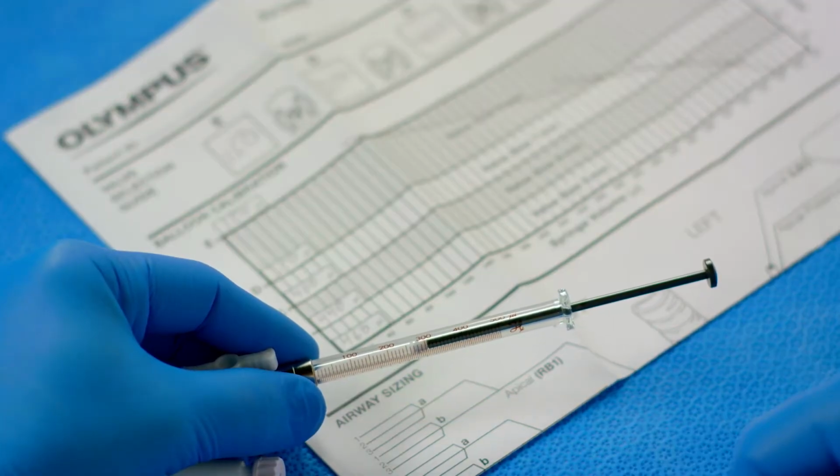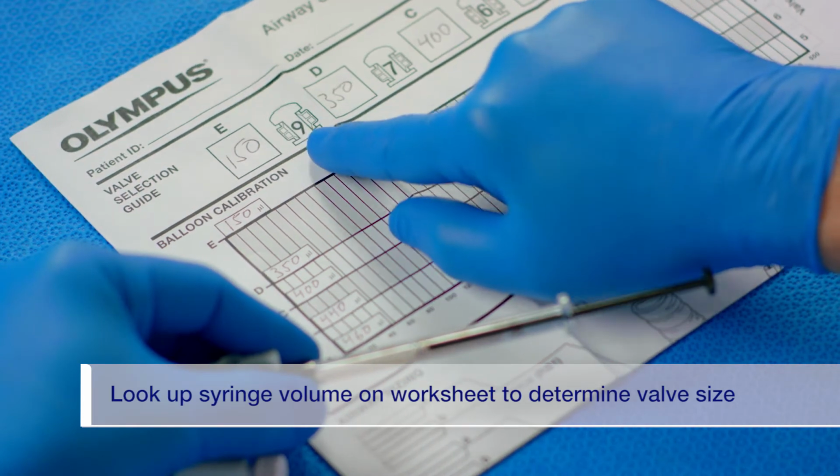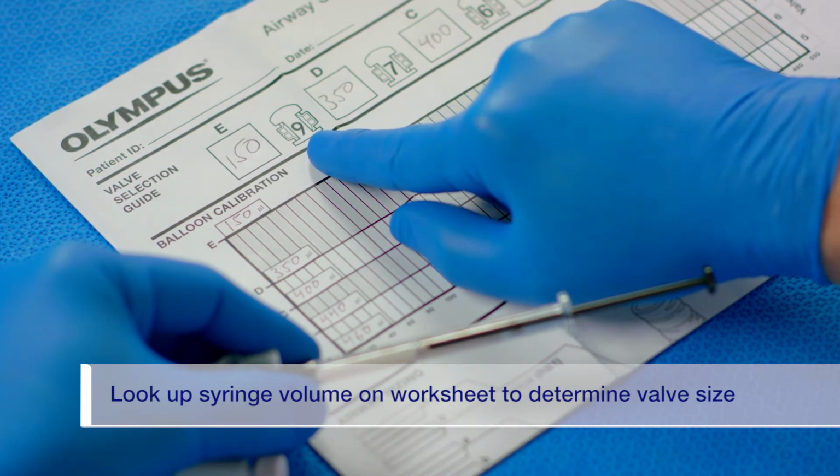Using the worksheet that was filled out during balloon calibration, look up the syringe volume on the worksheet table and select the indicated valve size.